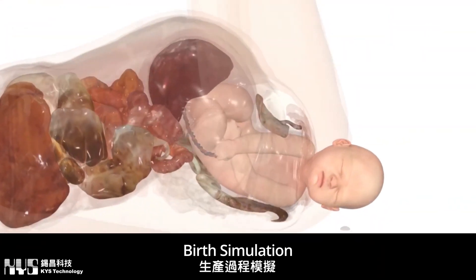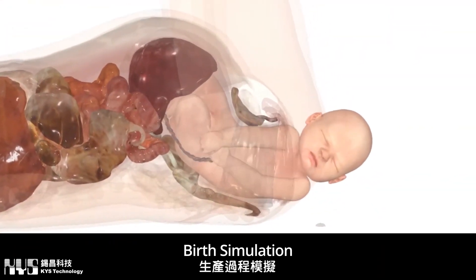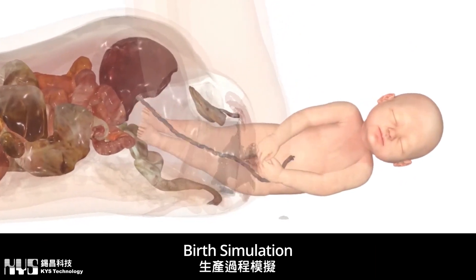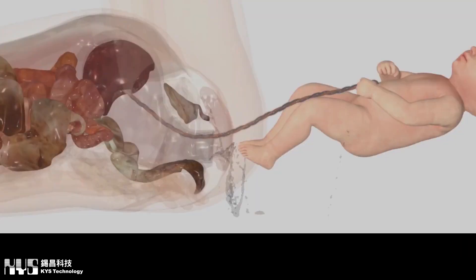This includes cervical dilation, infant rotation and head movements, and the release of the placenta in full 3D from any angle.